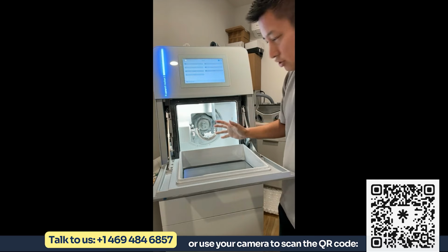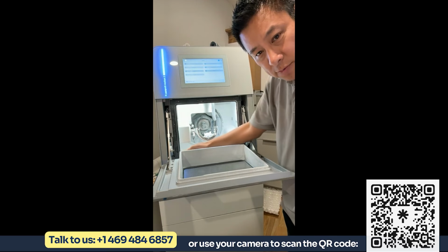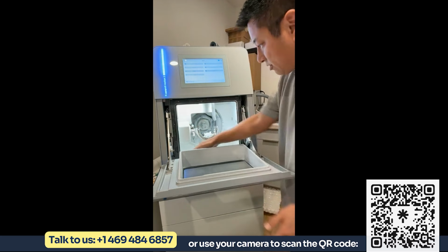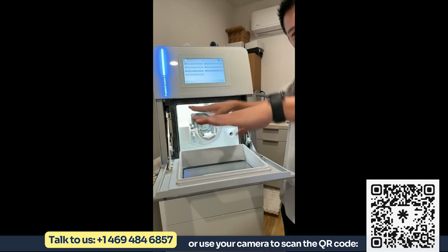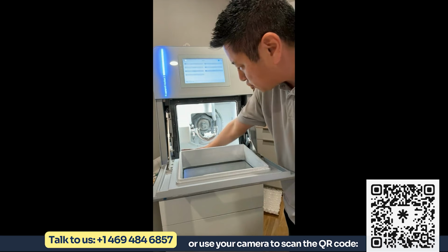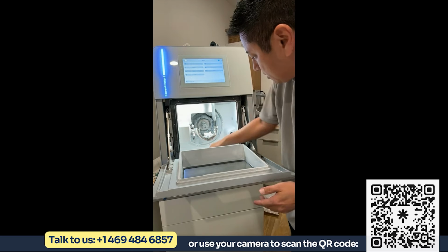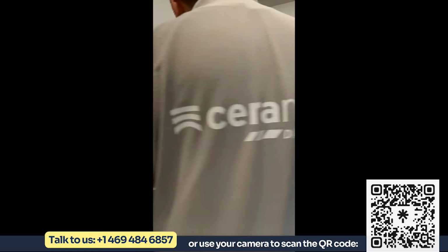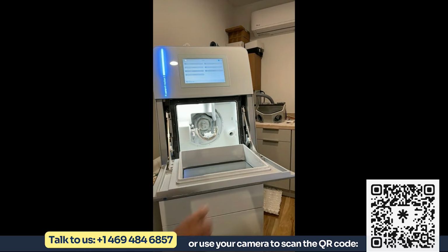All AG mills are designed on the inside to have no sharp corners. Now, this is all one piece cast iron, which means there's no possible way this can leak because everything is sitting in a cast iron little bowl down here. And again, no sharp corners, easy for the vacuum to get to these areas so that it's easier to clean. We also have inside here a camera.